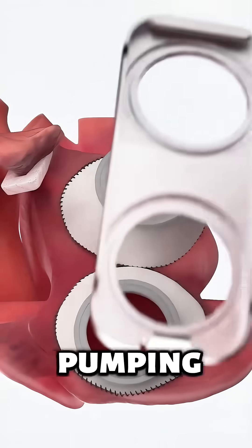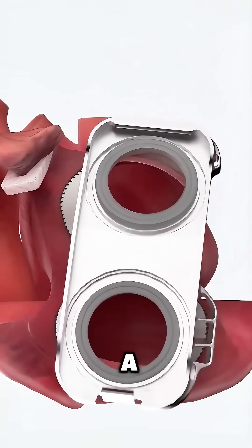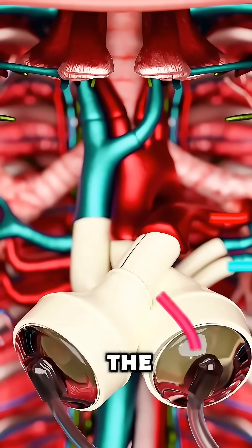This artificial heart has two pumping chambers made of special medical materials that work just like a real heart, sending oxygen-rich blood throughout the body.